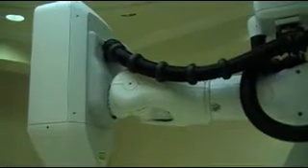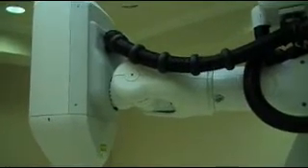Can you tell us more about the robot arm, what it does and how it does it? The robot arm's purpose is to move this linear accelerator into such a position that you could aim it with great accuracy. And the linear accelerator, that's what generates the beam of radiation.